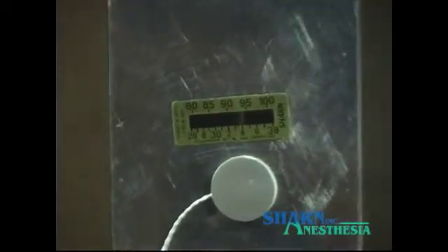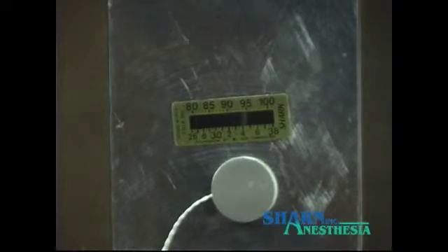This strip is reading and displaying skin temperature. Notice how quickly it displays temperature. It's nearly immediate and it changes up and down with the changing temperature as the hot plate tries to maintain the 94 degree setting.